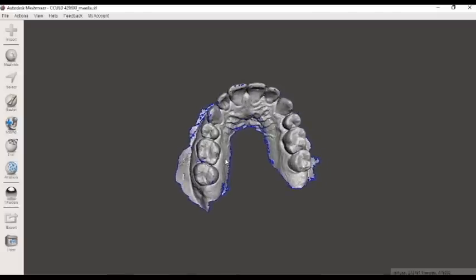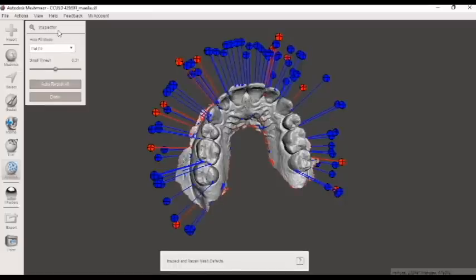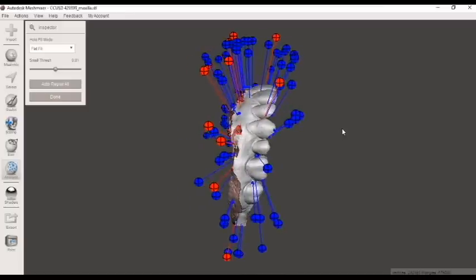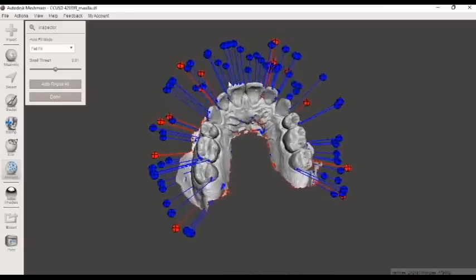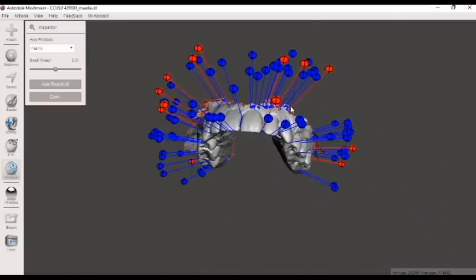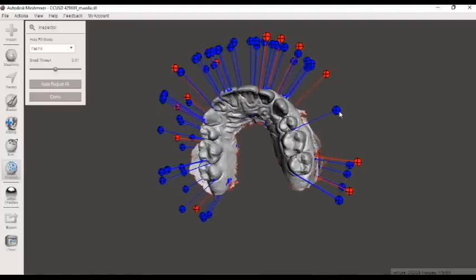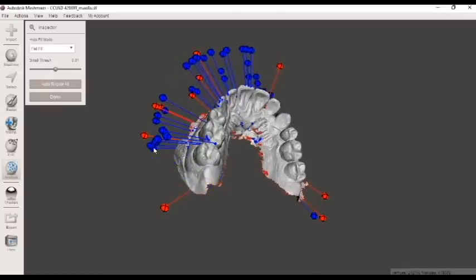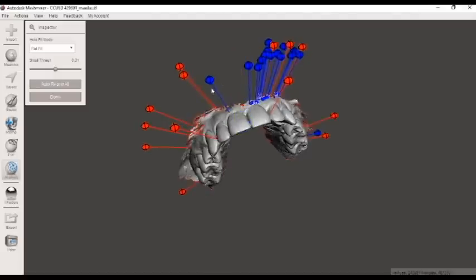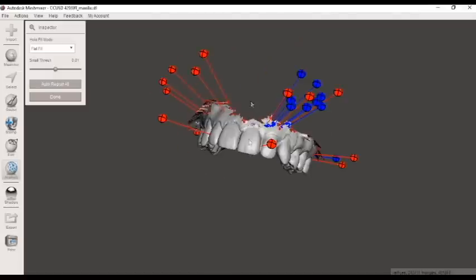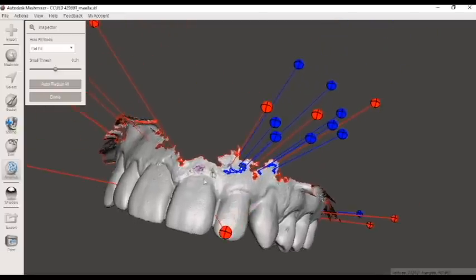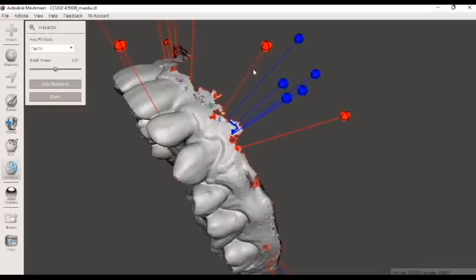Okay, so first I'm just going to fill the holes. We can come over here to our Analyze button and the Inspector key. This will show us all those holes that need to be filled and the different colors indicate a different size. So I'm just going to start by clicking the bubbles. If we zoom in nice and close you can see how the holes are filled here. Pretty nice and easy. Very cool.